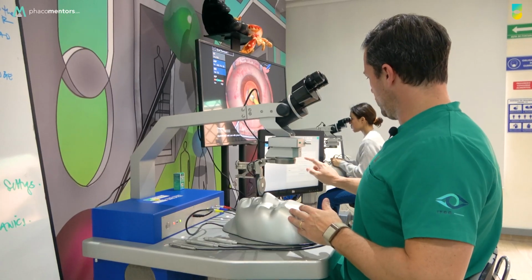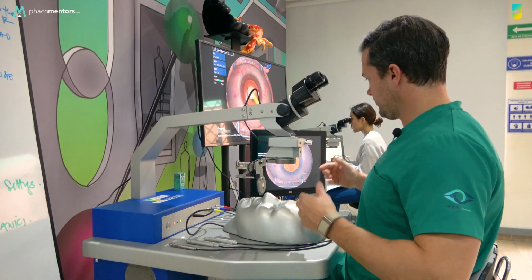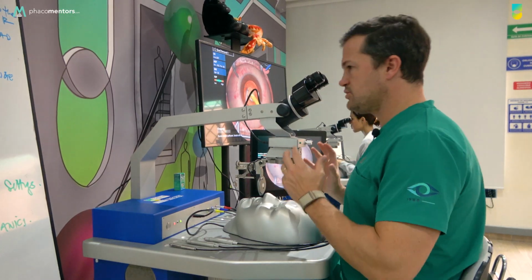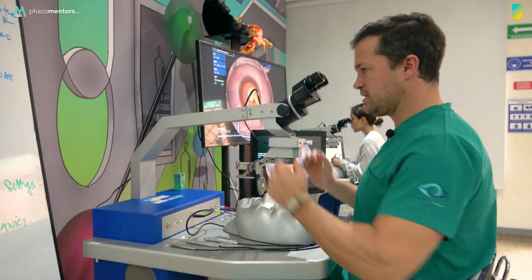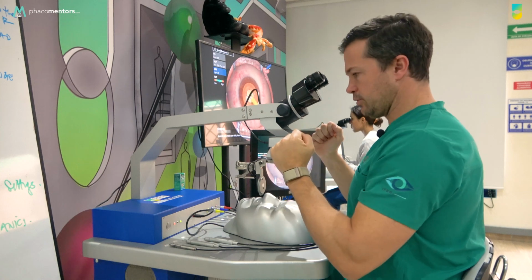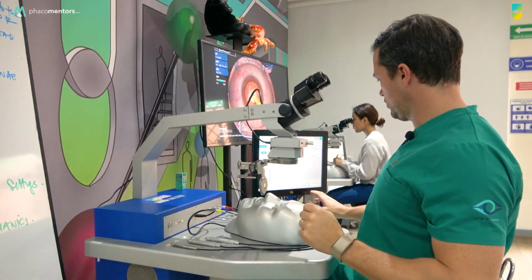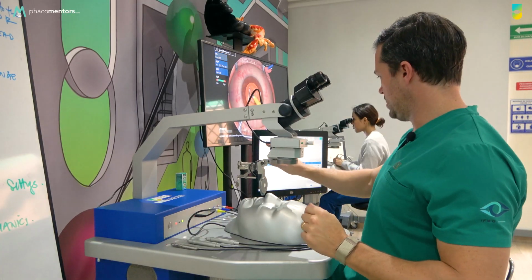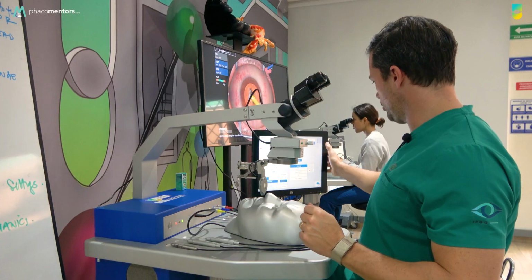When we're done with the ergonomics, let's go again to the task that we were discussing, and what you're going to find is you're going to be out of focus. Most of the time with the patient, you put your microscope in the correct position. In this case, it's fixed, but you have in the microscope, let's see it. You're going to have the foot pedal in the microscope right here.